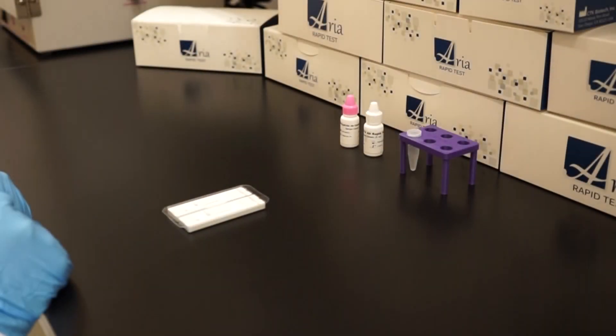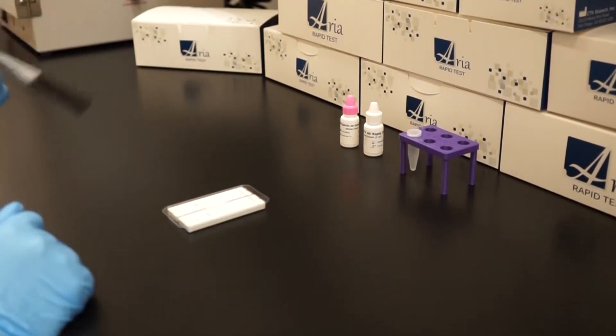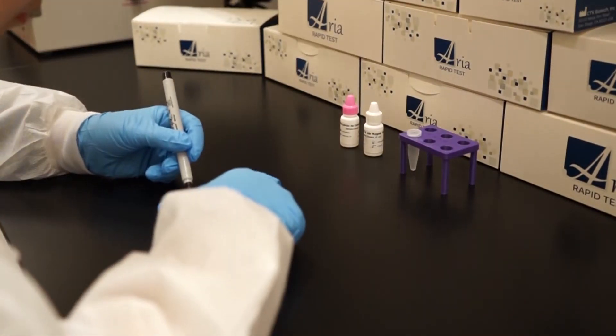Make sure your samples are at room temperature prior to testing. Label the device with the specimen ID number.